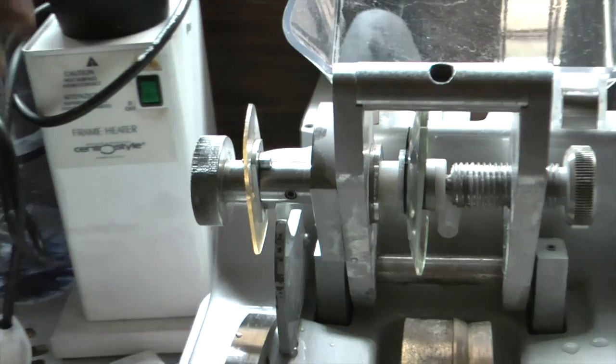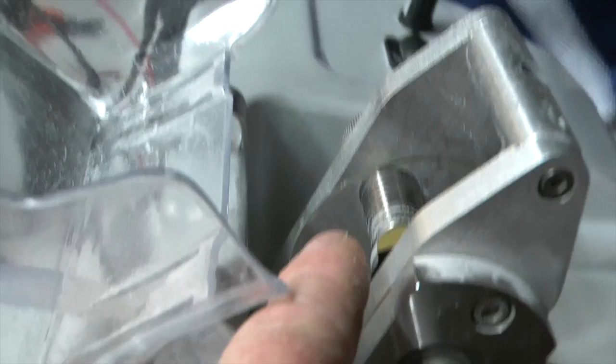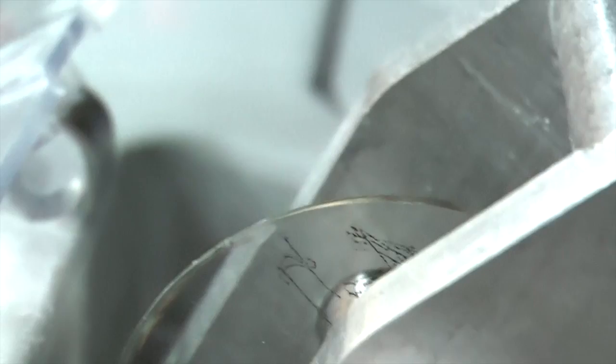We have the former and you can see the N is on it. There is also an N on the lens - this is a coated lens so it's not easy to draw on, but you can just see the N which represents the nasal aspect, the part nearest the nose. As long as those two ends are facing the same direction, we know that the lens is in the right way.